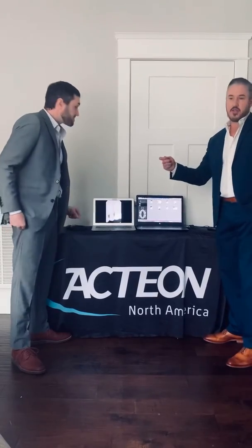To really drive these sensors home, we do offer free clinical training. Eric and I are a good example of your local representation — we split this territory, so you've got support there. You've also got free clinical training for positioning and software questions, free technical support, free support for life for the product, best warranties in the industry, no fees associated, very aggressive price points, and a very aggressive rebate program running to the end of April where you can save up to $500 per sensor.